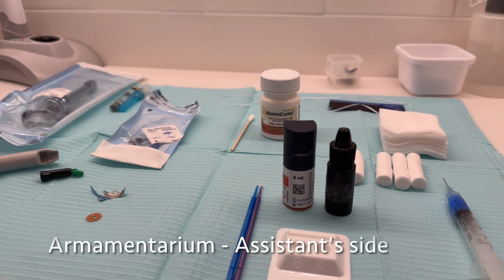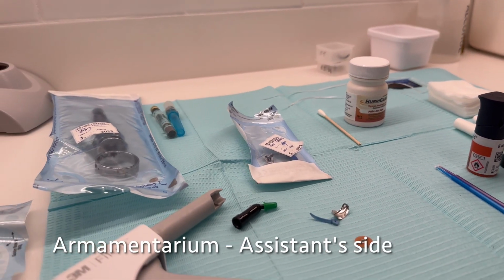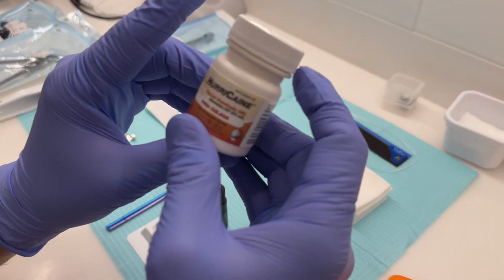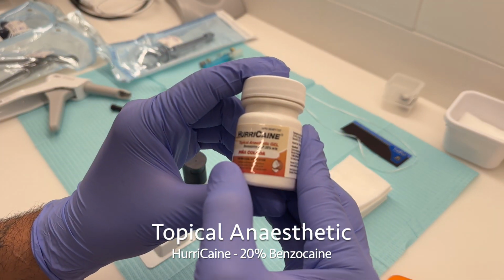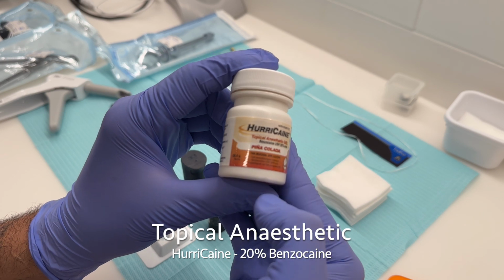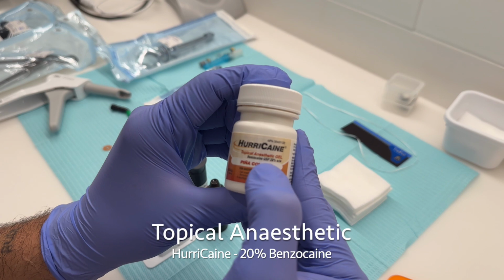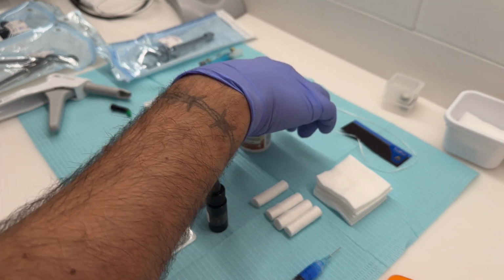Let's get started. We're going to start with the armamentarium on the assistant side. These are all the gadgets and tools that you'll need to have a successful restoration. Starting off, we have topical anesthetic. As a level 2 DA in Ontario, you can use this product and apply it to your patient. This is used prior to injecting the local anesthetic. This product here that we use is Hurricane. It's a 20% benzocaine product.